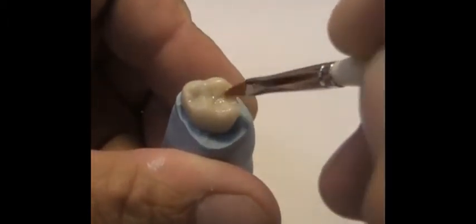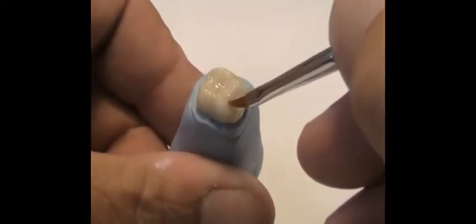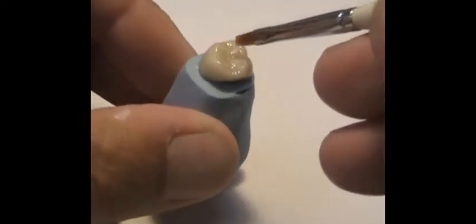It also sets up what I call a slurry-free zone. If you're trying to add colors to a wet surface, they tend to look like slurry — they move all over and don't coat uniformly. It's like painting on a wet surface, almost like watercoloring. When you have wet paper and watercolor goes on, it runs all over and glops in certain areas.